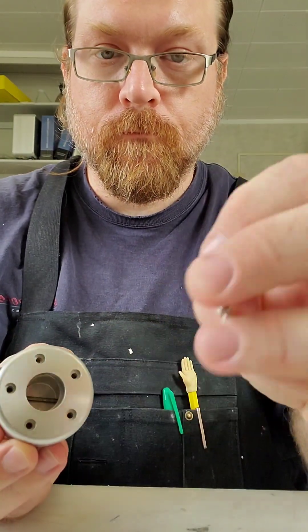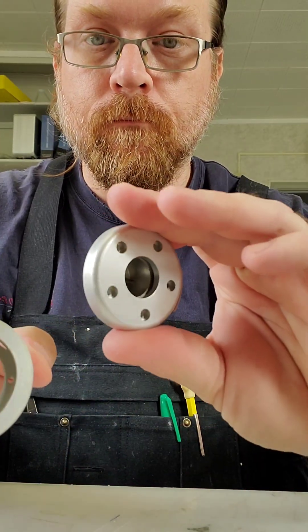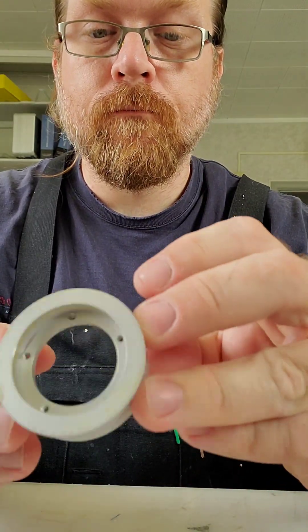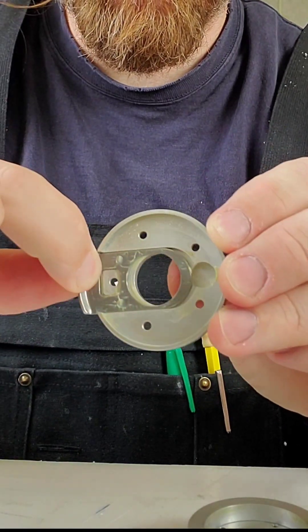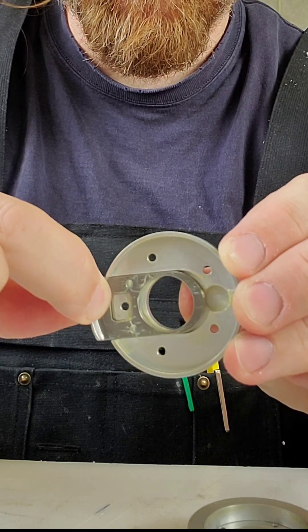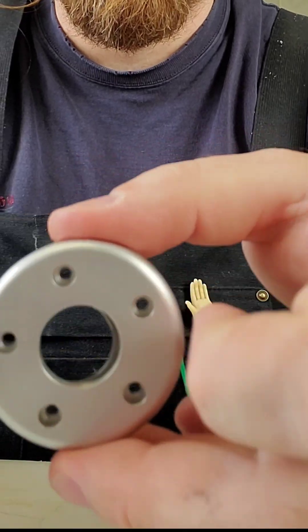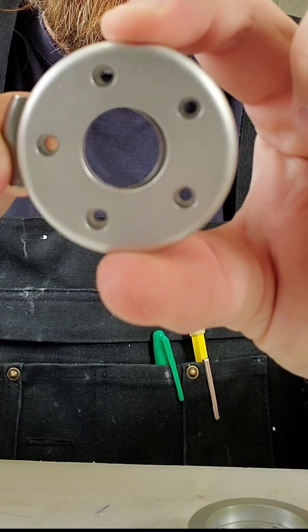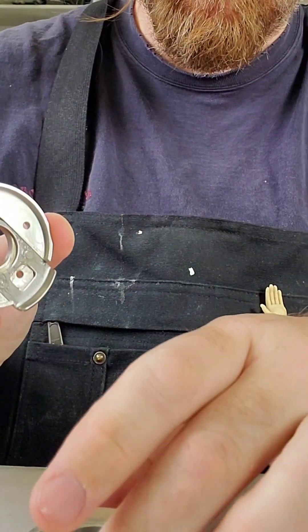This is taking apart the wrist. First, I take the five screws out and separate the lamination part, which is right here — that part will get laminated in. I'll fill it with putty. This is the locking part — there's actually a ring that'll lock it all into place that holds onto the wrist unit. You can see about a sixteenth of an inch comes over and that'll lock into that ring.